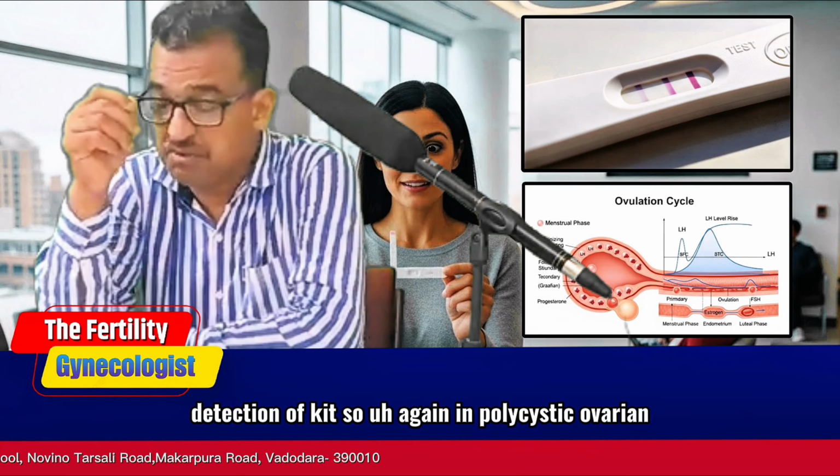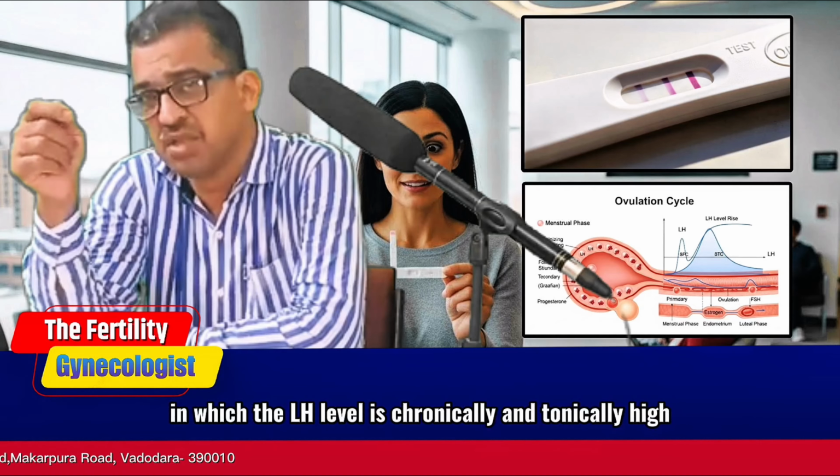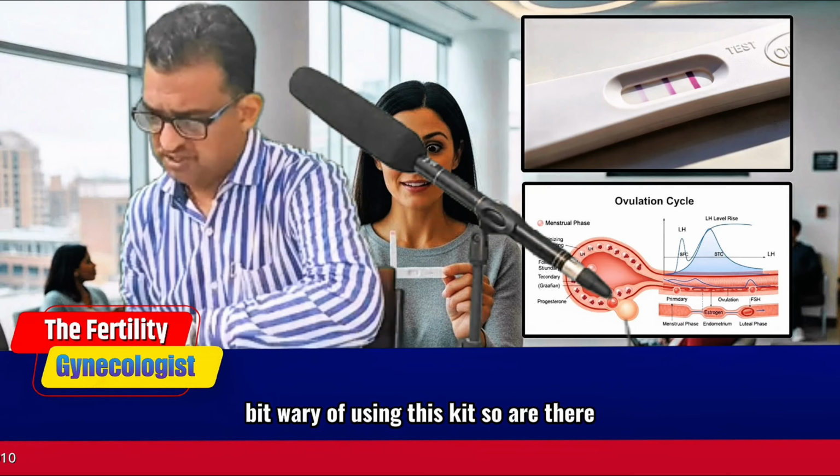Again, in polycystic ovarian disease cases in which the LH level is chronically and tonically high, this kit may again give a false positive. So in those cases we have to be a bit wary of using this kit.